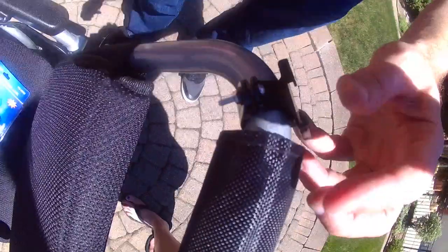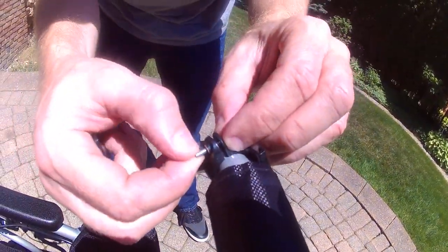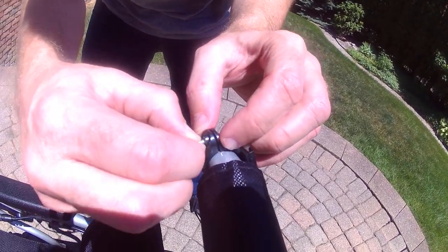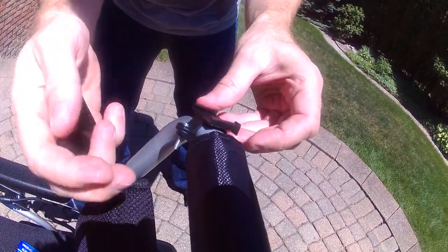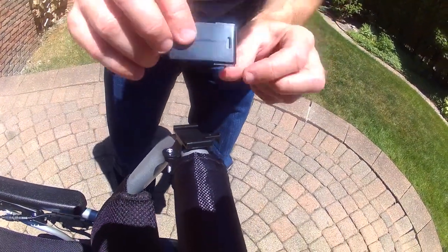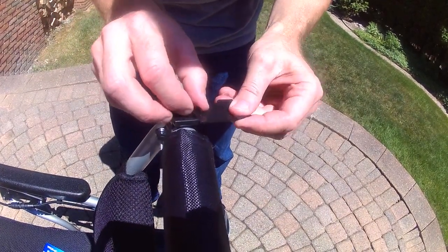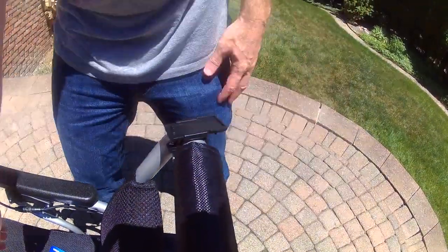I will simply use my fingers here to tighten the screw up a little bit. When you have decided specifically where you want the screw, you can do a little bit more work. You can see that there is a ridge on the bottom here that sits into this little notch. The bottom platform is in place.